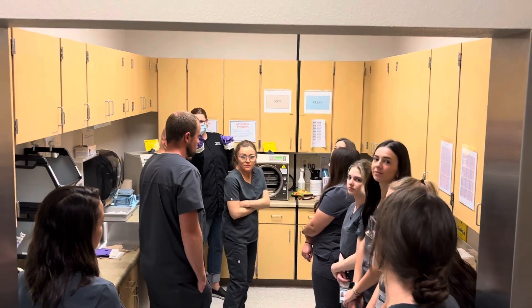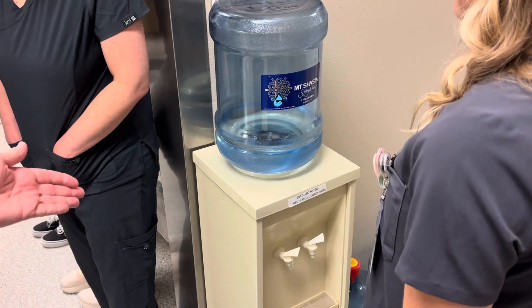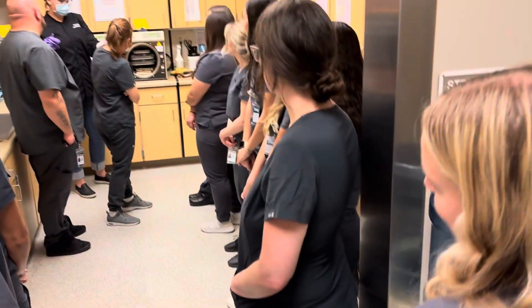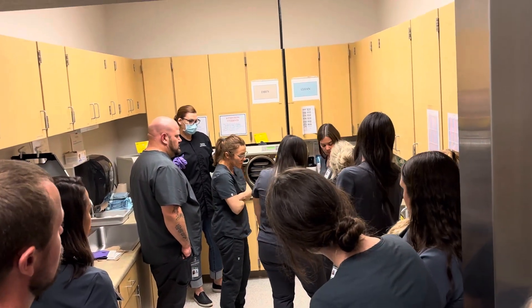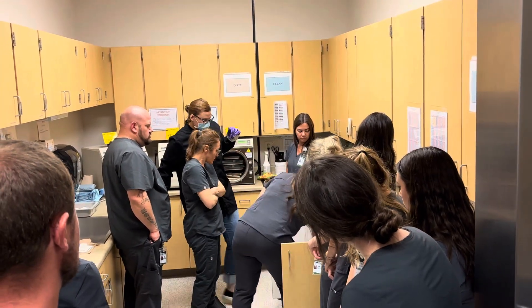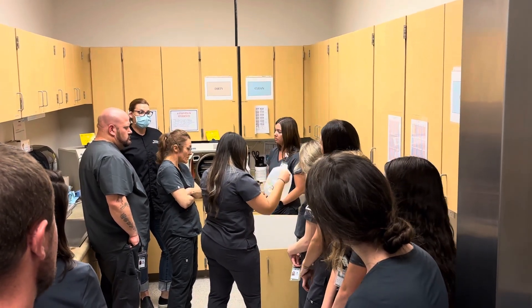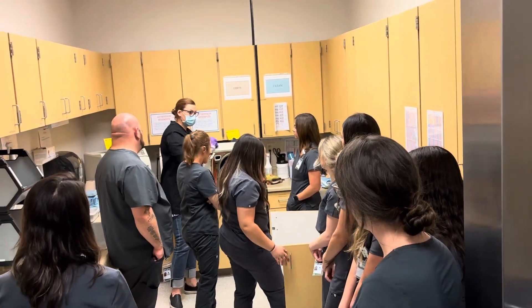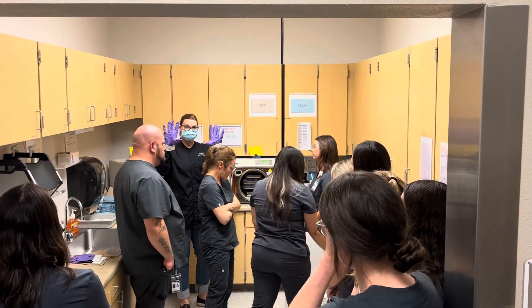Next, behind Stephanie, there is a water tower. That is not for you guys to drink from — that is our water for using in our autoclaves. And in the cupboard behind Claudia and Ashley, if you guys want to open that up — that is clean. That is our water for getting water from that water cooler and then pouring it in here. You notice it is on the clean side. That means you never touch it with these.